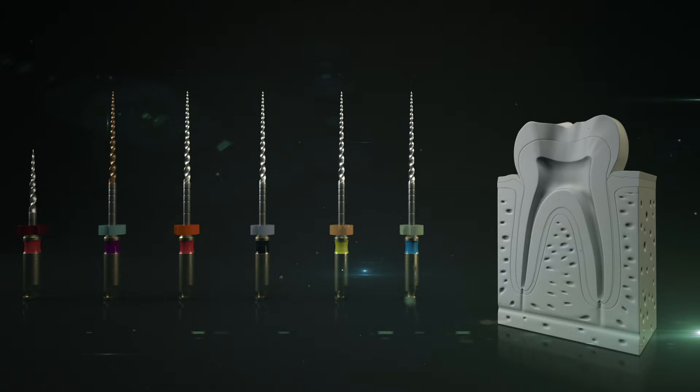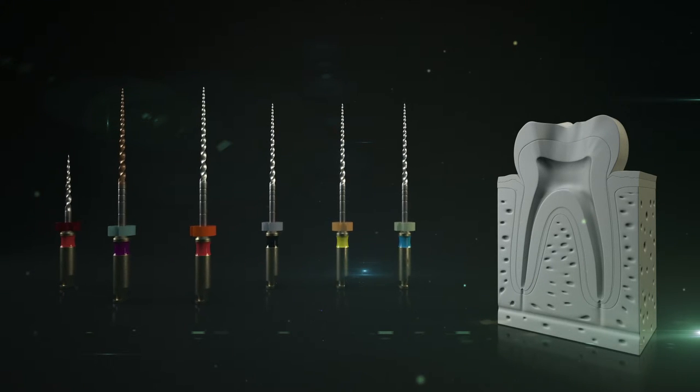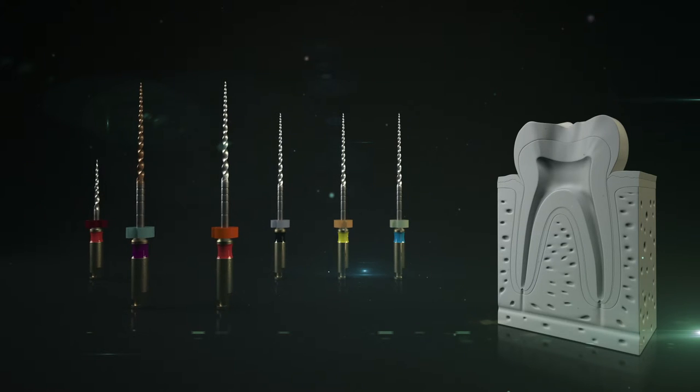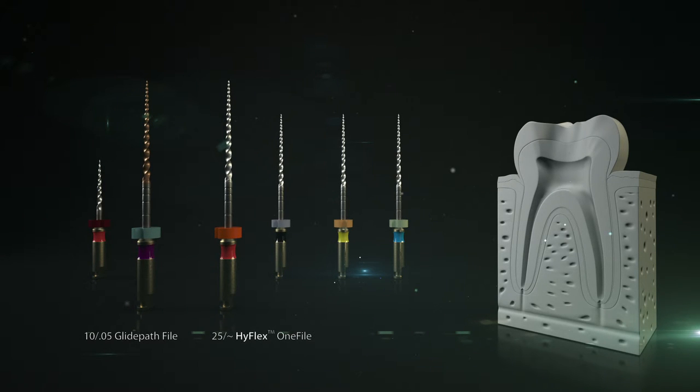In simple cases, the root canal can be cleaned and equally well prepared with just 2 files as with the traditional HyFlex CM sequence.